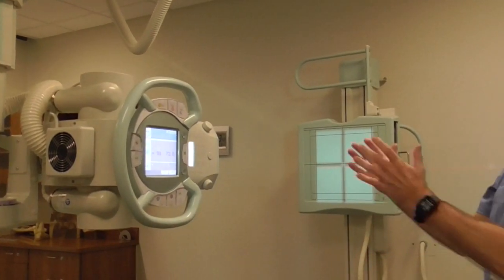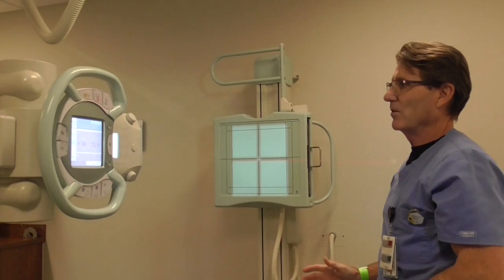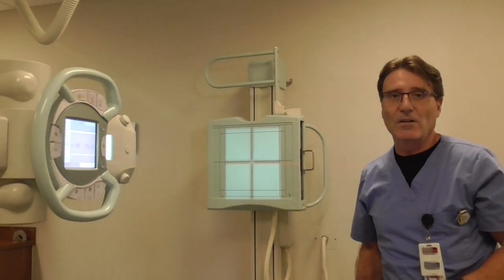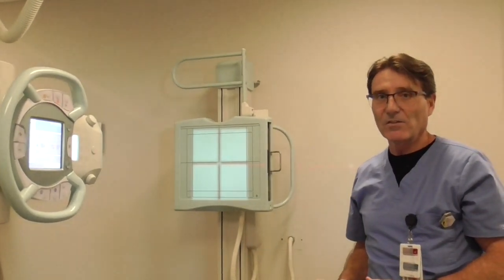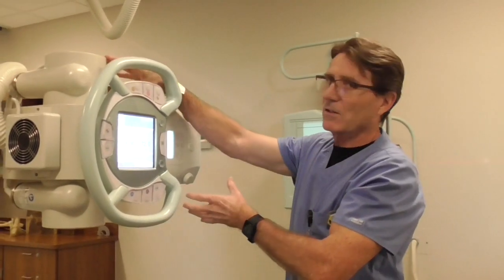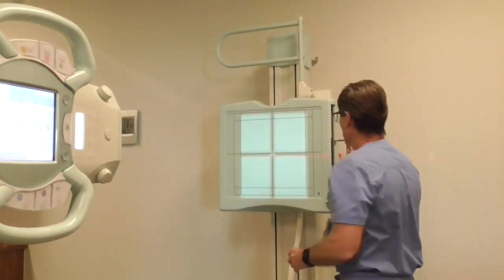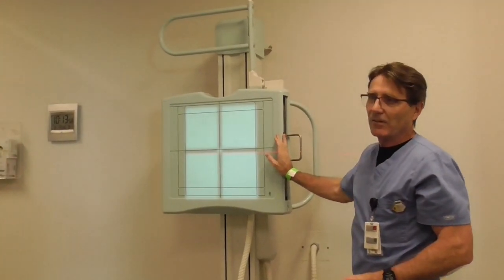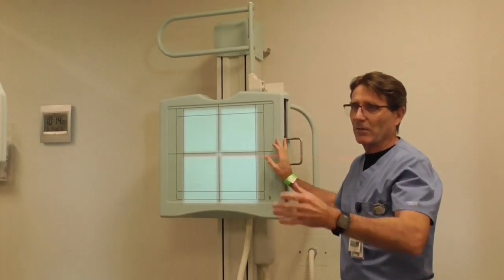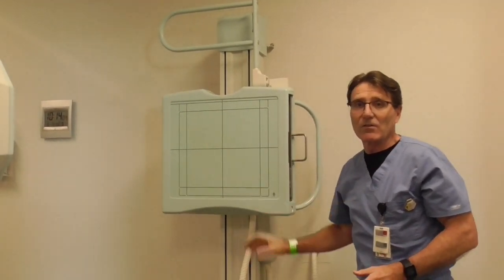I have my x-ray tube aligned with my wall bucket at 72 inches SID. SID stands for source to image distance. The source of x-radiation is your x-ray tube, and the distance is how far the image receptor is from the x-ray tube. In this case it's a 72 inch SID, which is a standard distance used for chest x-rays.